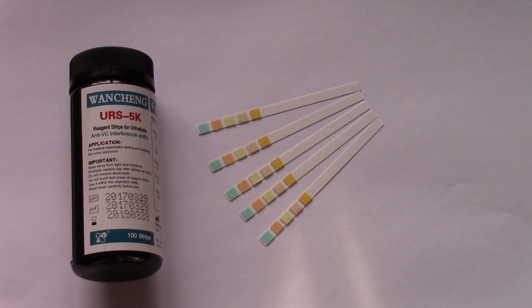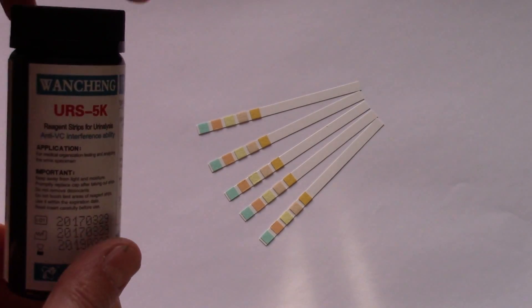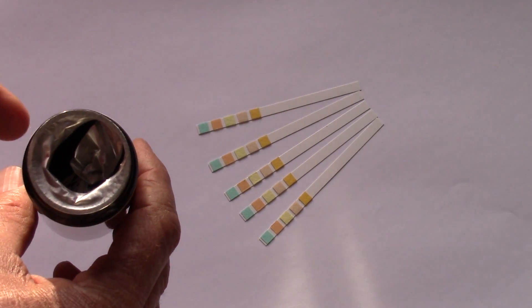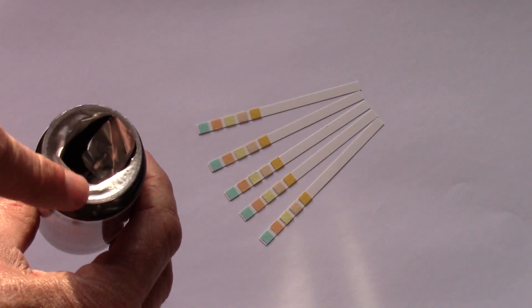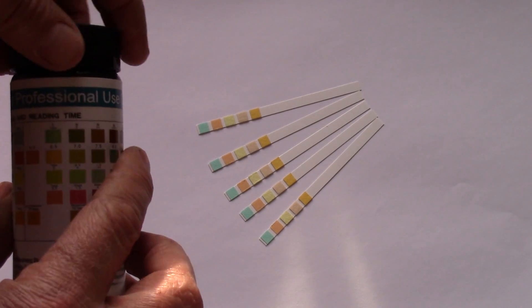With all urine test strips, as soon as you've opened the pot and broken the seal, when you unscrew the cap, they should have a seal which should be unbroken at the time that you get the test.